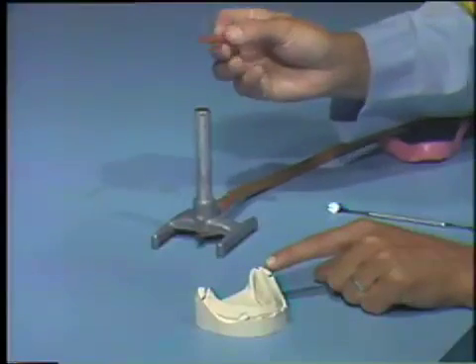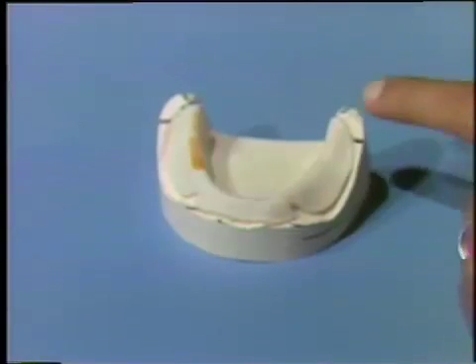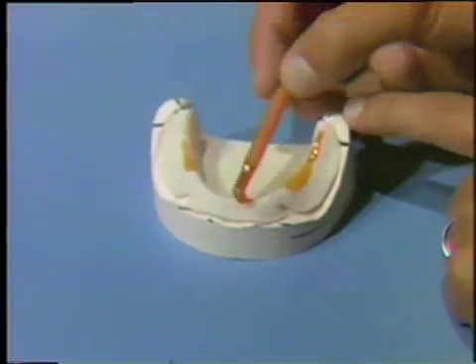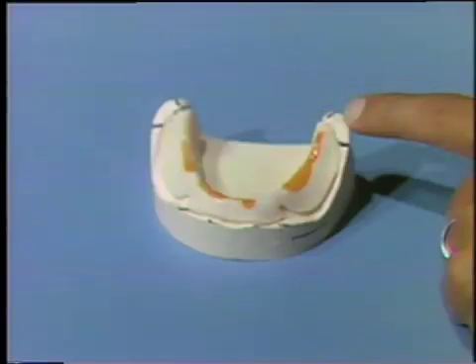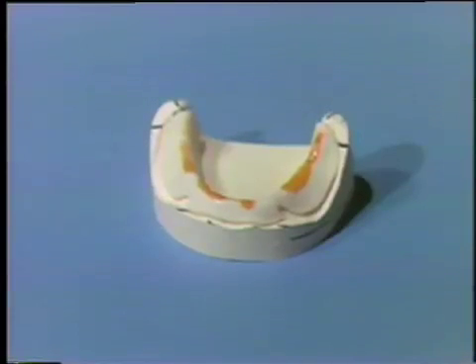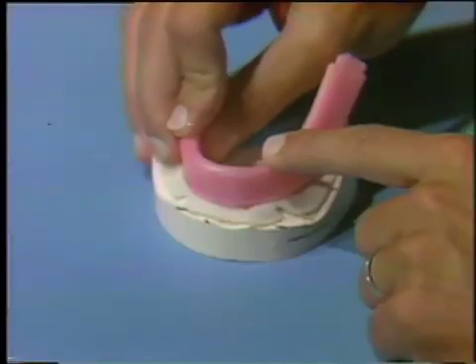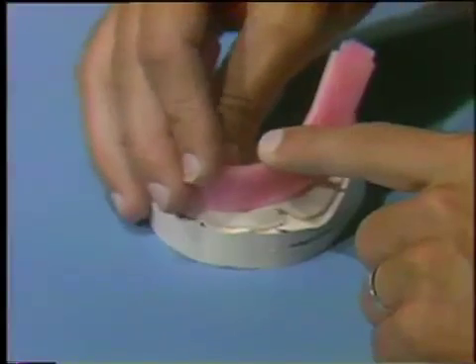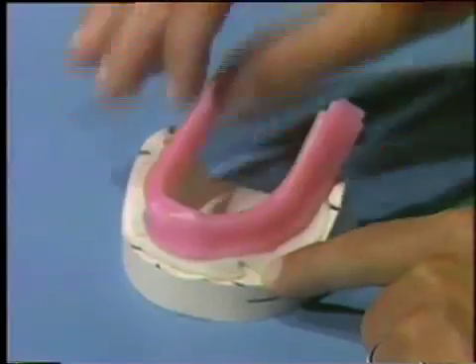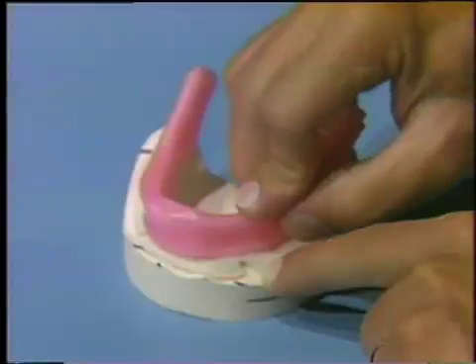Next, apply sticky wax in several places along the crest of the ridge areas of the tray. Center the wax rim on the tray buccal-lingually. Adjust the rim with your fingers to approximate its final position according to the criteria: one to two millimeters below the top of the retromolar pads, parallel to the mean of the residual ridge, and labially oriented.